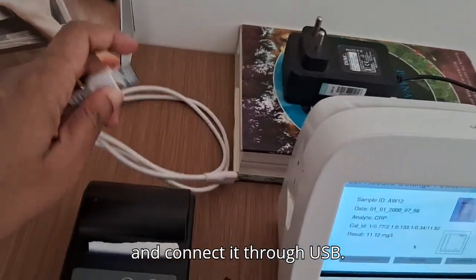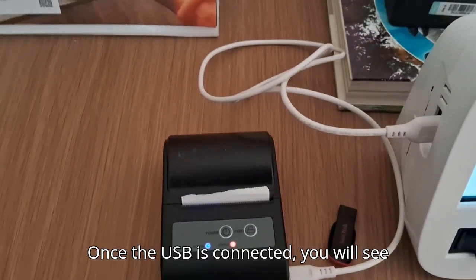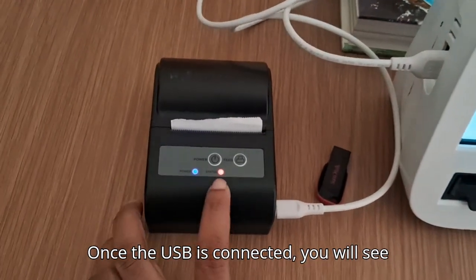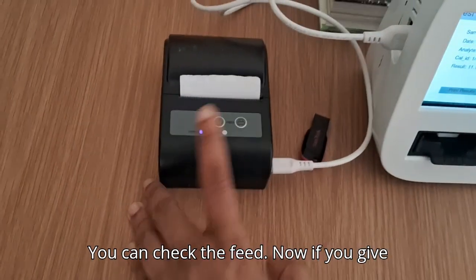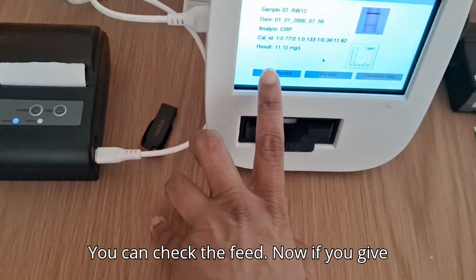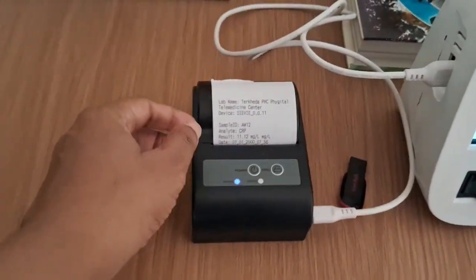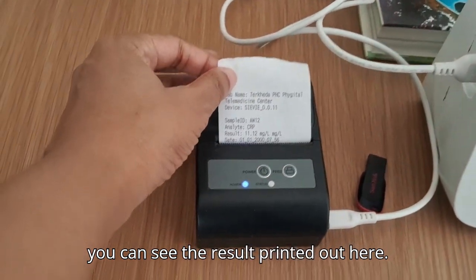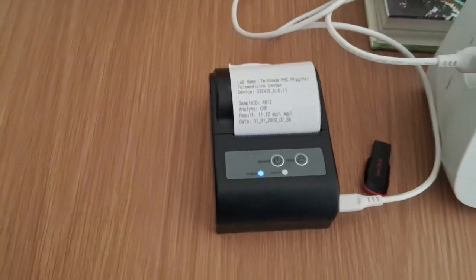And connect it through USB. Once the USB is connected, you will see the status here. You can check the feed. Now if you give print results, you can see the result printed out here. Give feed and tear it off.